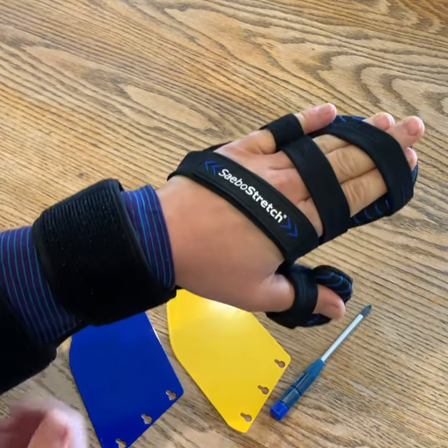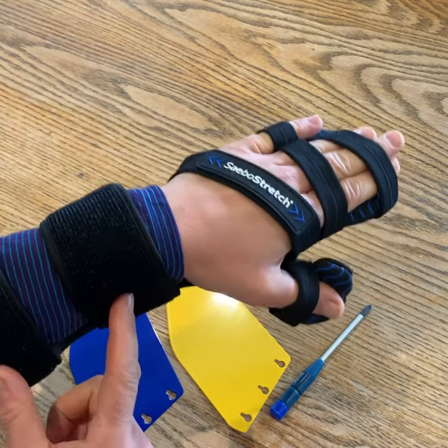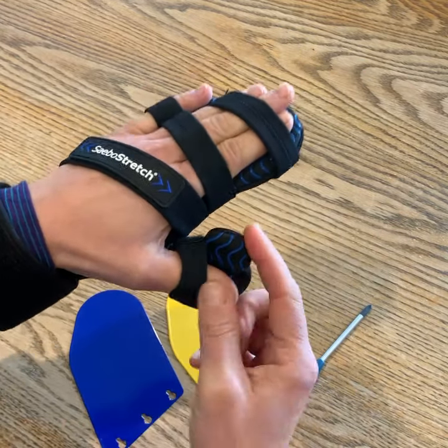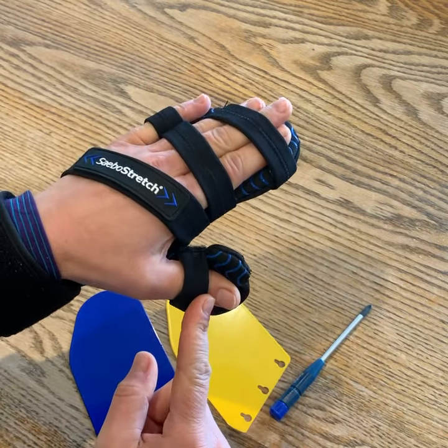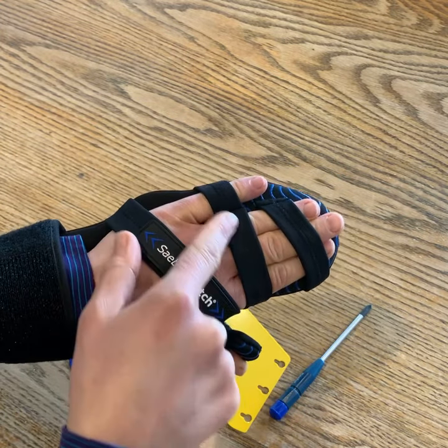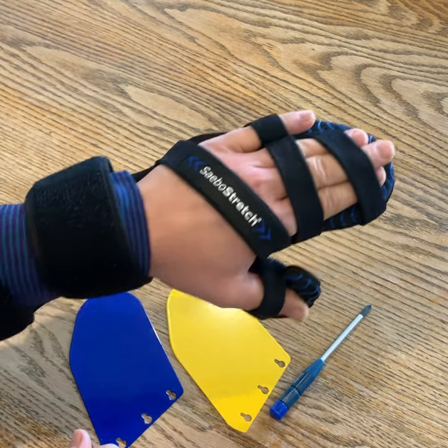The strapping system keeps the hand in nice and safely and comfortably — two forearm straps with wings at the back that fold up, a thumb stop that bends up to stop the thumb rolling around, and a separate little finger strap rather than just one strap across all fingers, which can sometimes allow the little finger to slip out the edge.